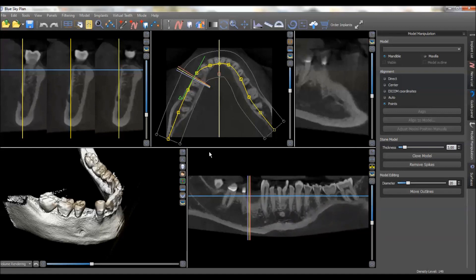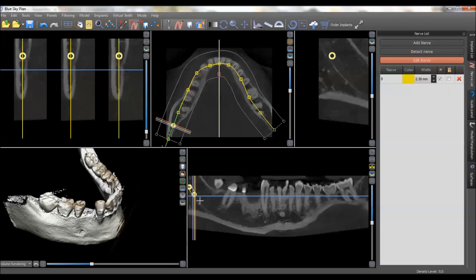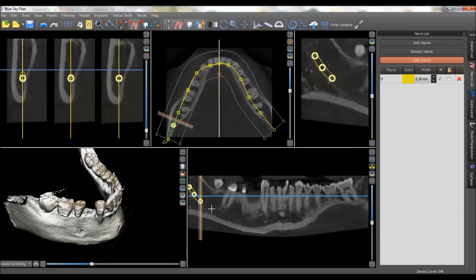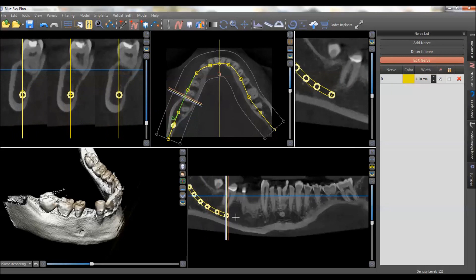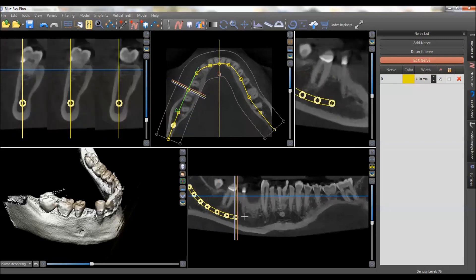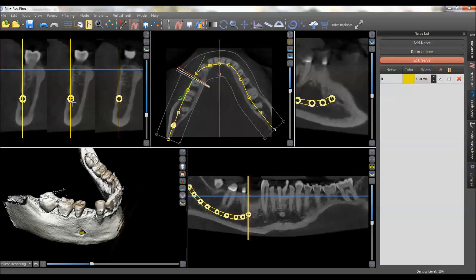So what we'll do is come up here and click 'Add Nerve,' and then you just start clicking away — we'll do points all the way down the extent of the nerve up to the mental foramen. You'll notice up here in the top left window that we're now at the foramen, so we can click one outside of that and that should map our entire nerve.